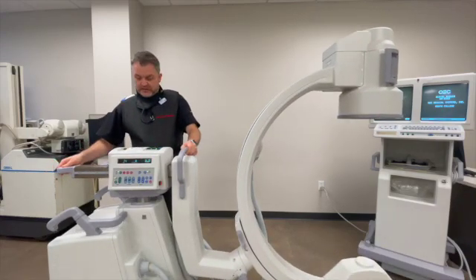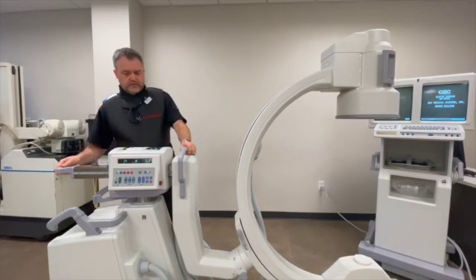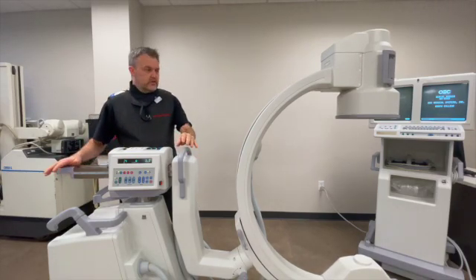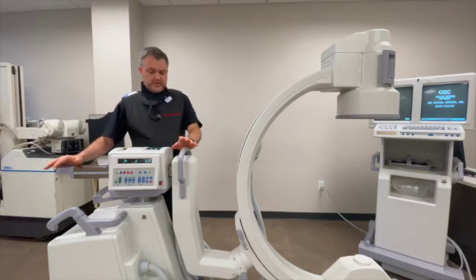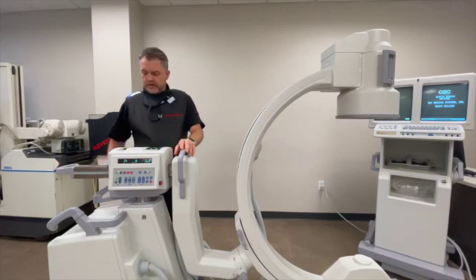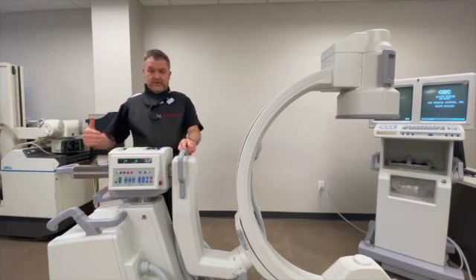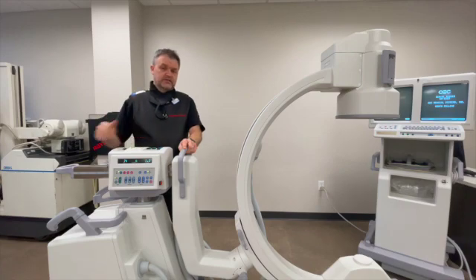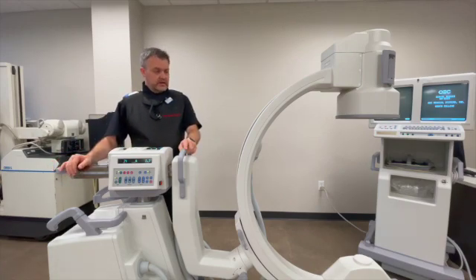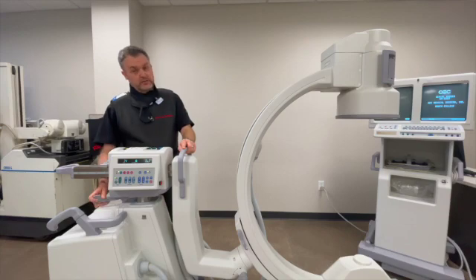If you want to maintain the base, make sure your base is locked. If you're doing primarily orthopedic surgeries, the WAG is not a function you would really use a great deal, because it can deviate the angle. I want to make sure I maintain my base perpendicular to the body part I'm looking at. There are very few instances where I would use this — it's not a lock I would typically use.